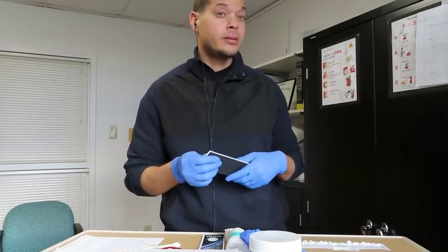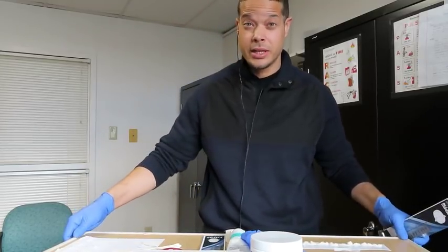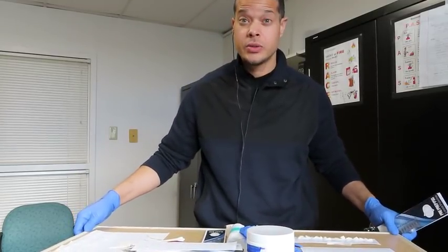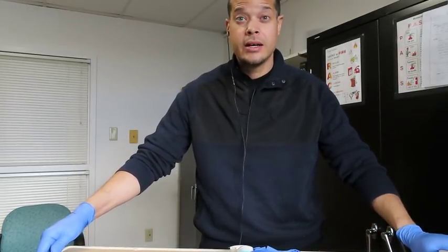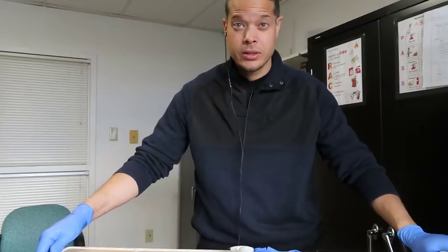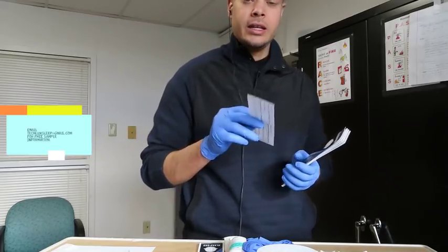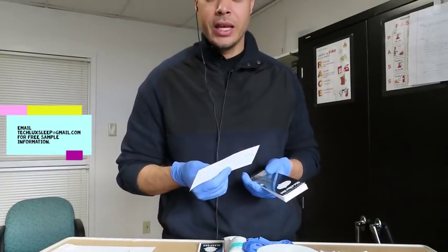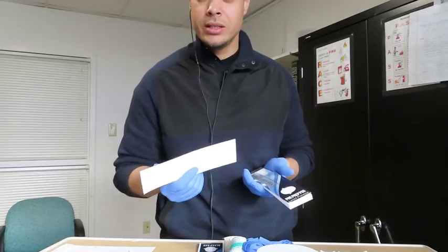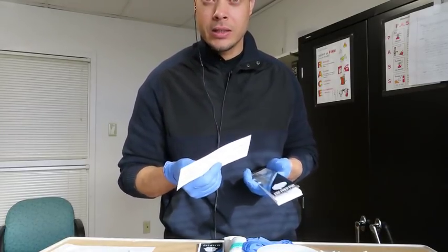I've been using this system for many years, and it's been helping me with my overall setups and helping me to train students, PSG sleep students, and some EEG folks also. So again, this is something that's kind of new, and it's basically for anyone that wants to save time with doing their setups, and for patients in terms of sleep studies and in terms of EEG studies.